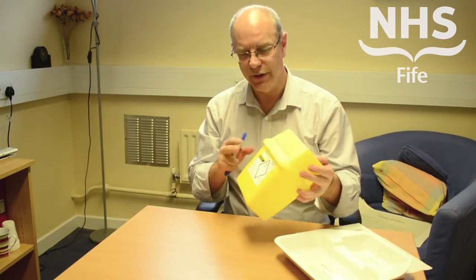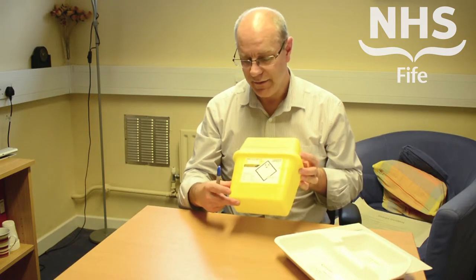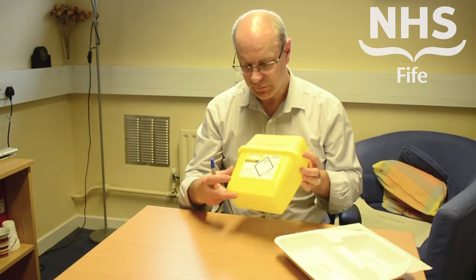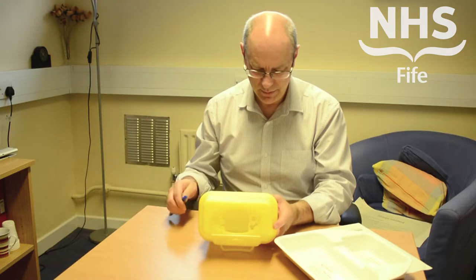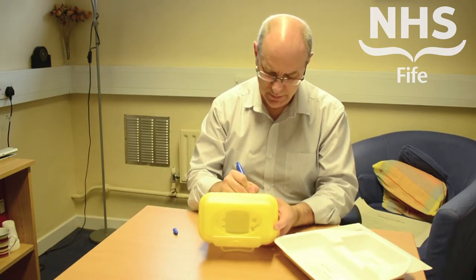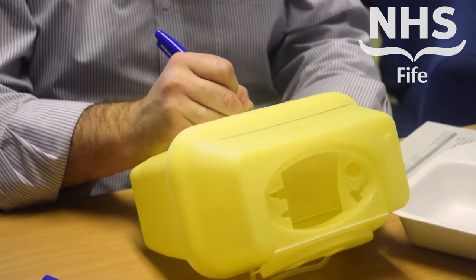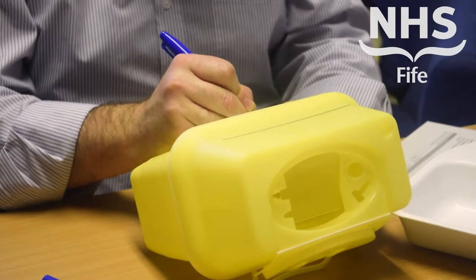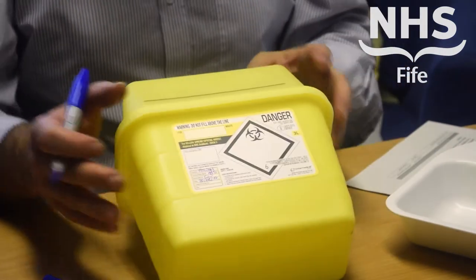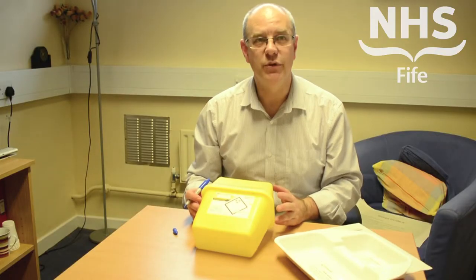When you're assembling, please make sure that you complete the assembly label so that we can see where the bin has been assembled, by whom, and on which date. You can see the labels filled in with those details of where it has been assembled and by whom.